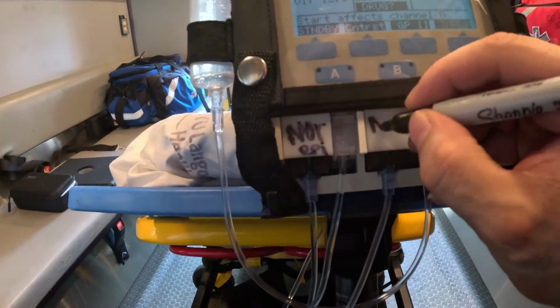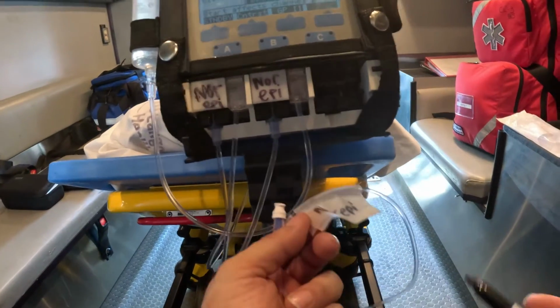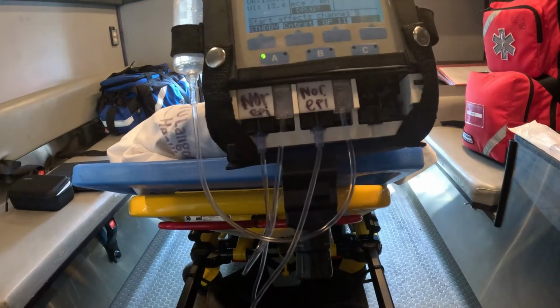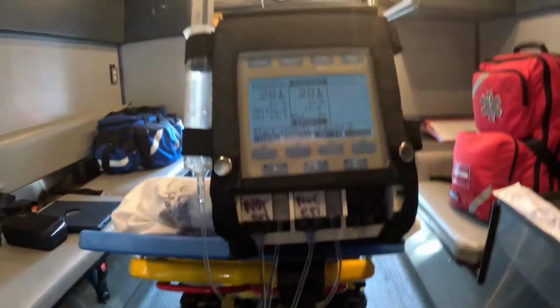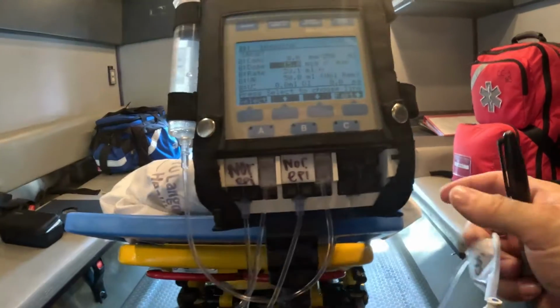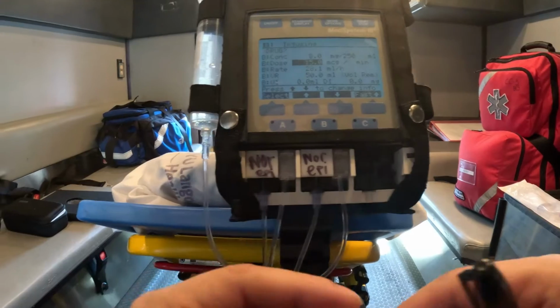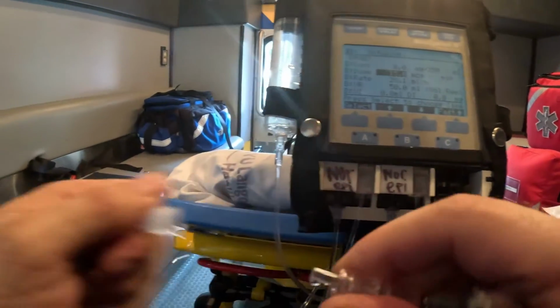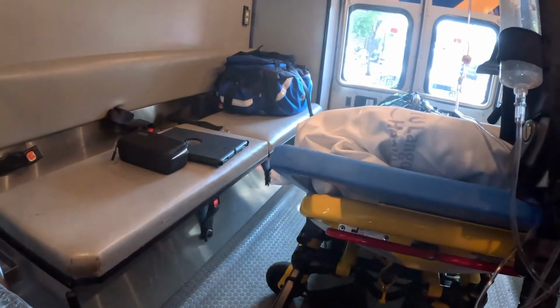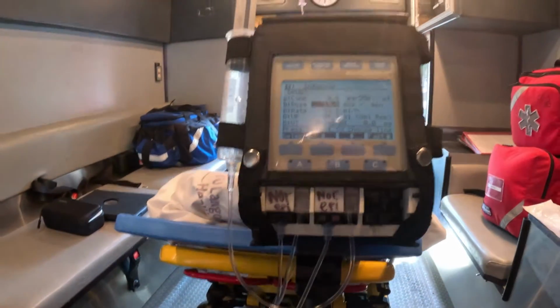So I'll label this here. You could label it here, right? So now the syringe is in, the drug is in, and then what you're going to do is say channel B and say start. I'm going to take off this cap, so it starts to infuse. So the medicine is infusing. Put this in my garbage bin for now, so it's essentially infusing, right?